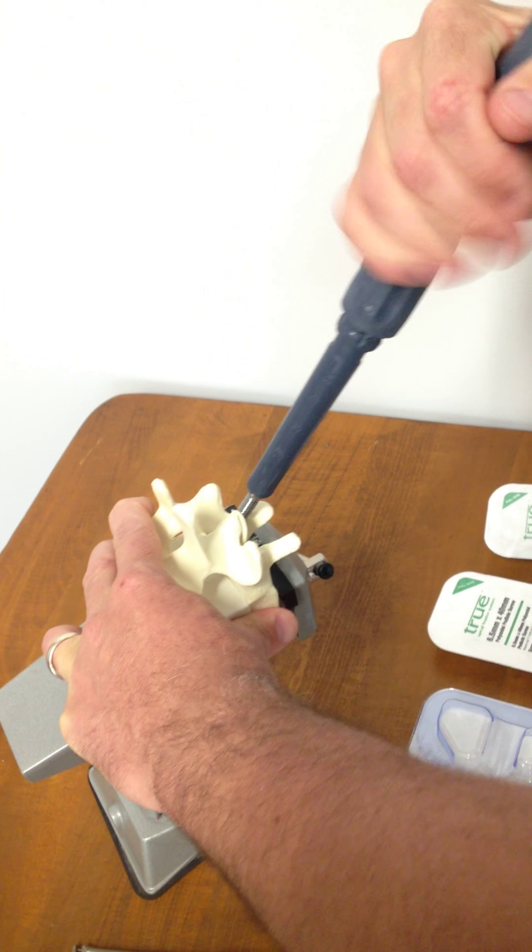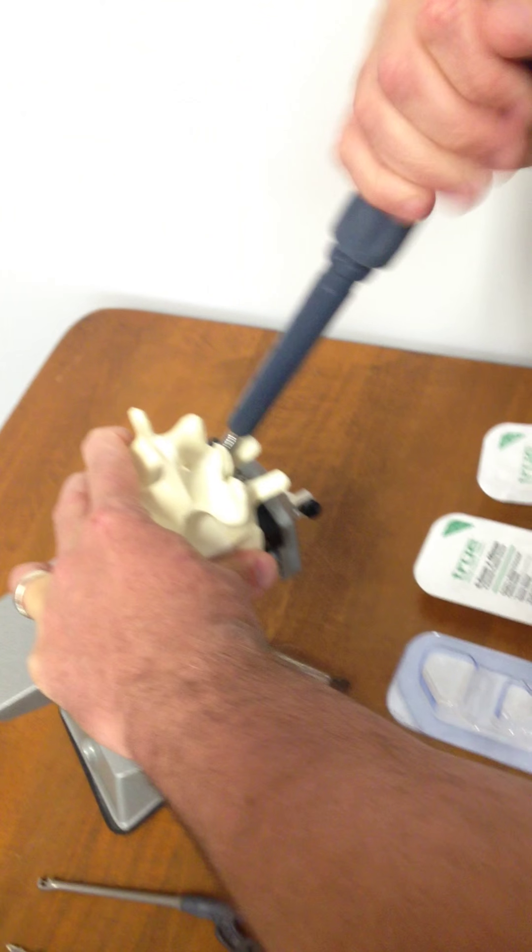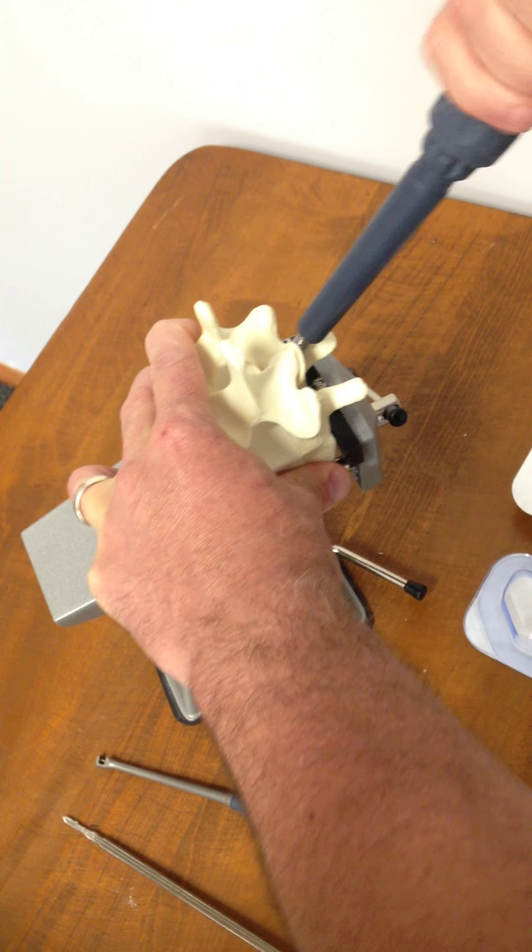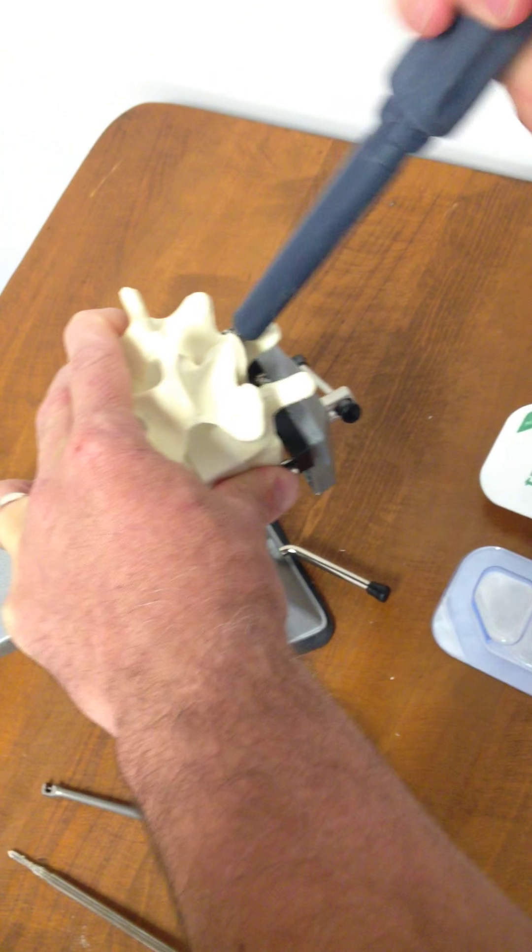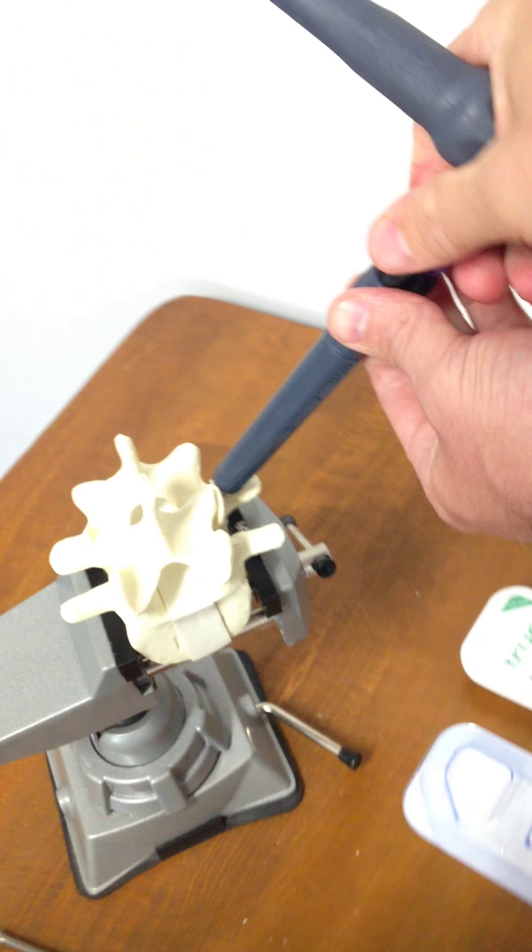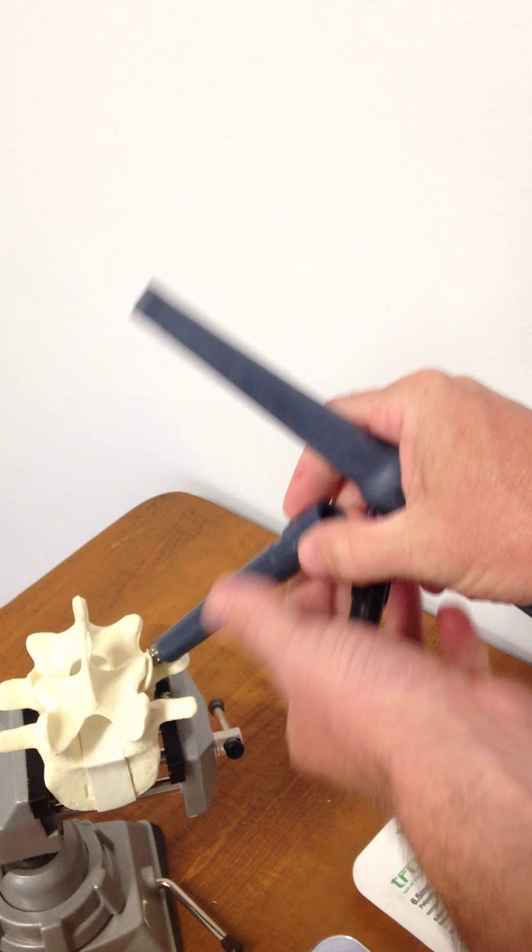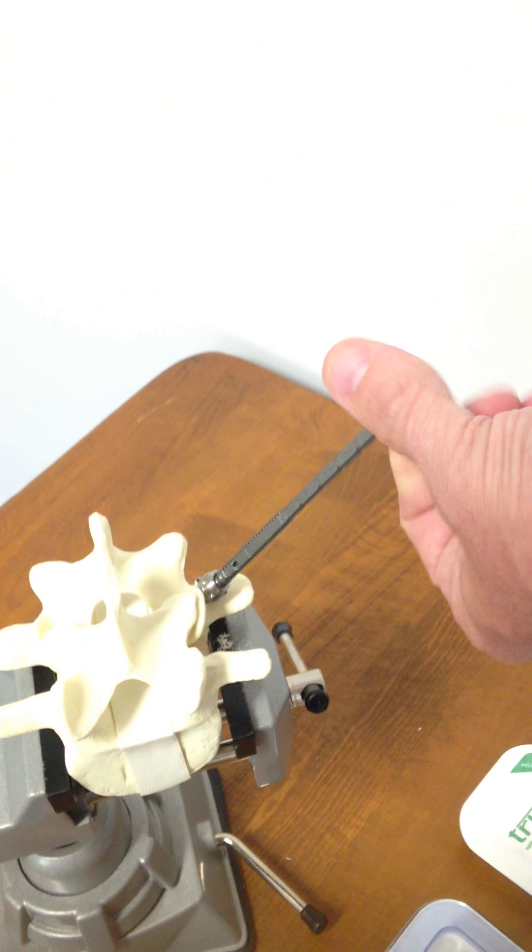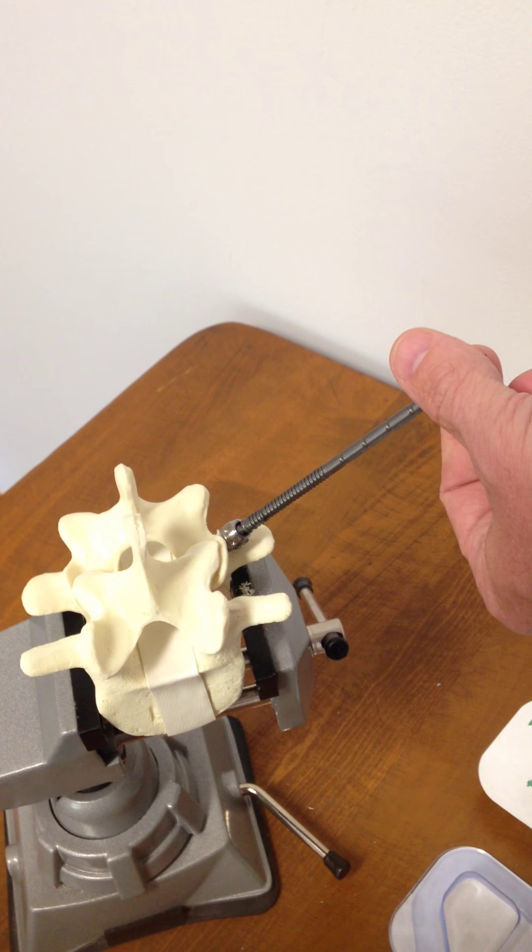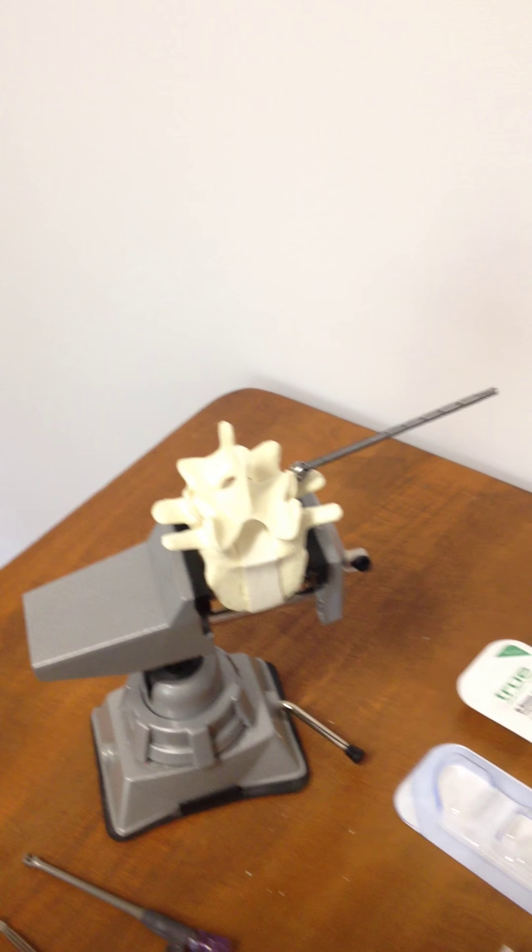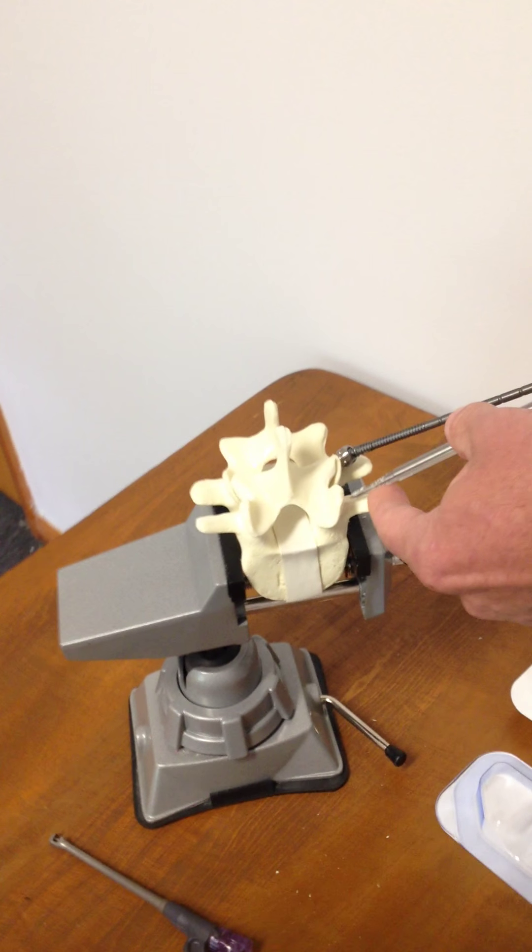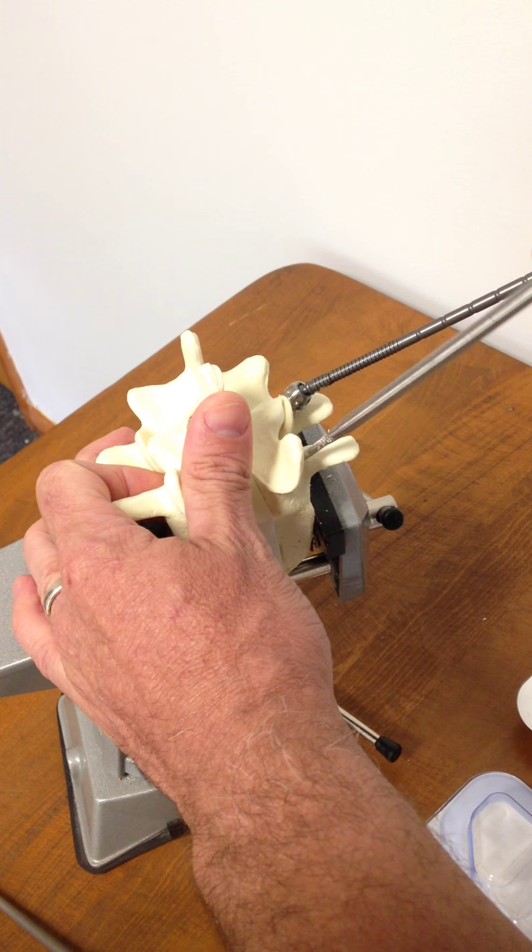Our screws are double lead threaded for ease of insertion. And then for removal, we simply take the purple cap on the top of the screw, and that exposes a polyaxial free-spinning breakaway shaft that sets the torque for our caps. That was the first screw, and now we'll come back in and do placement for our second screw.